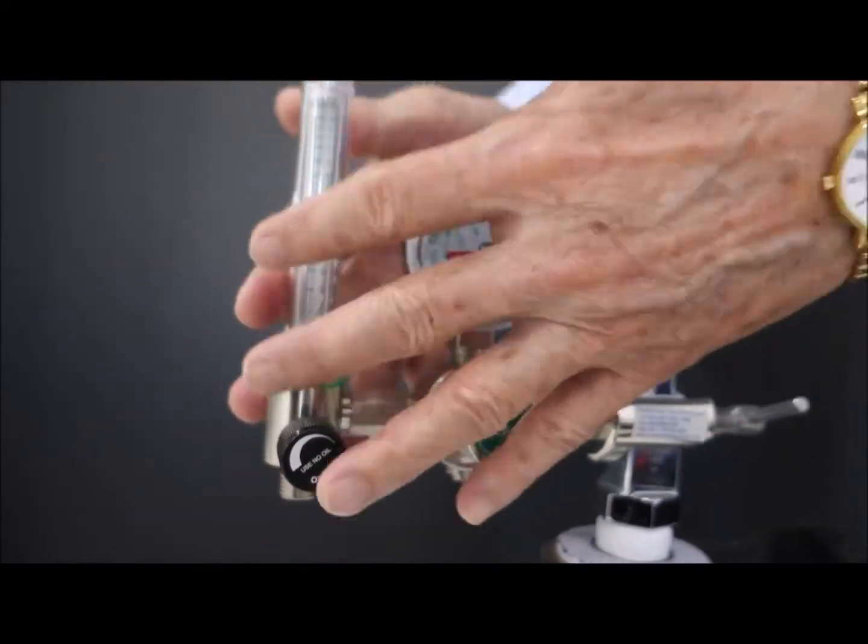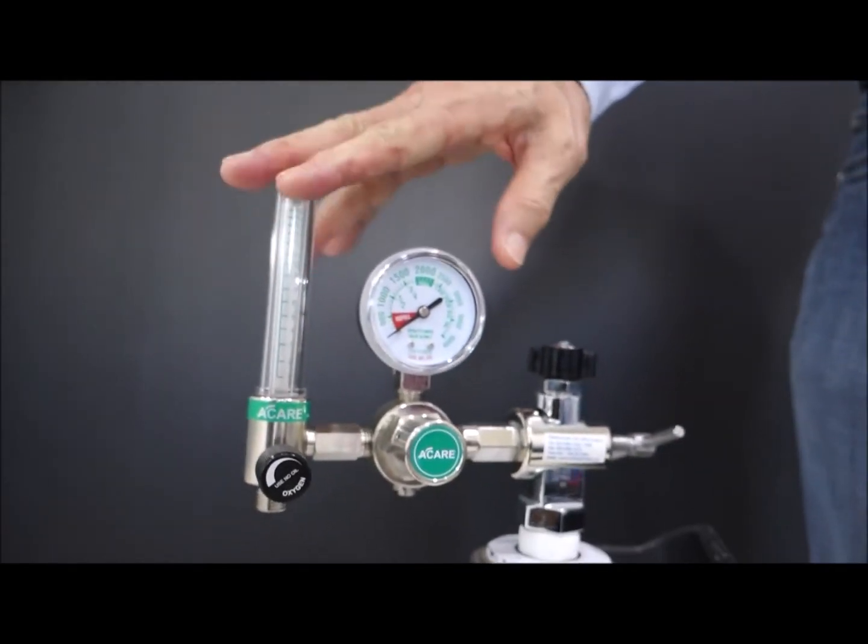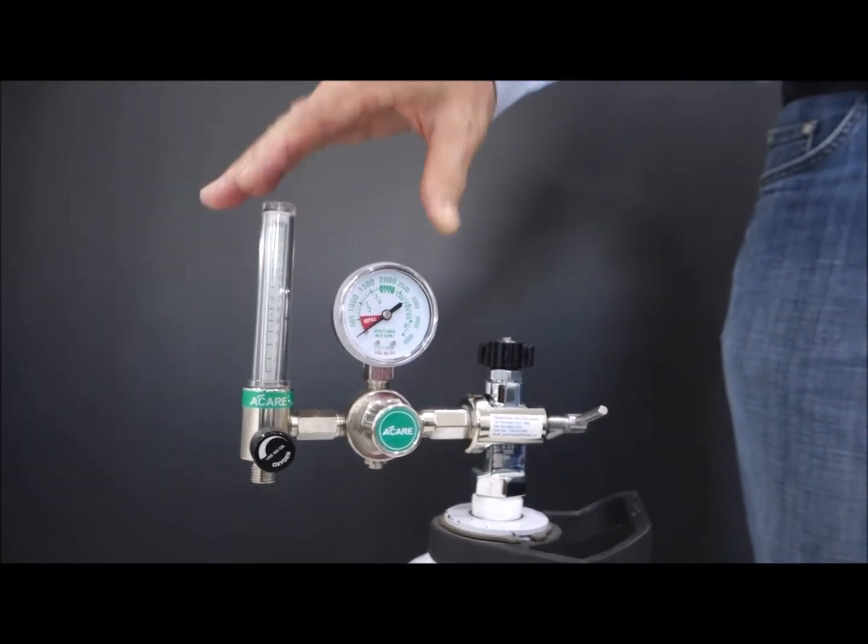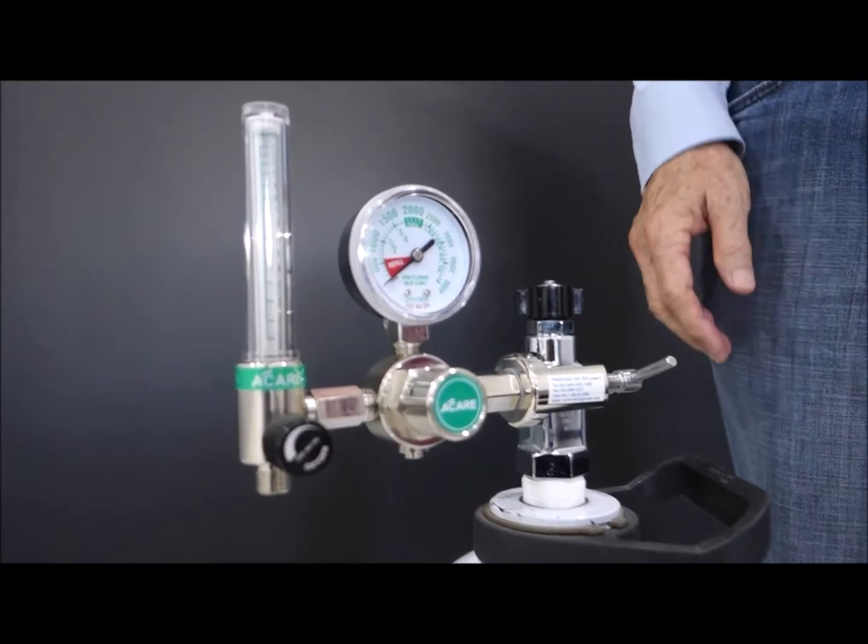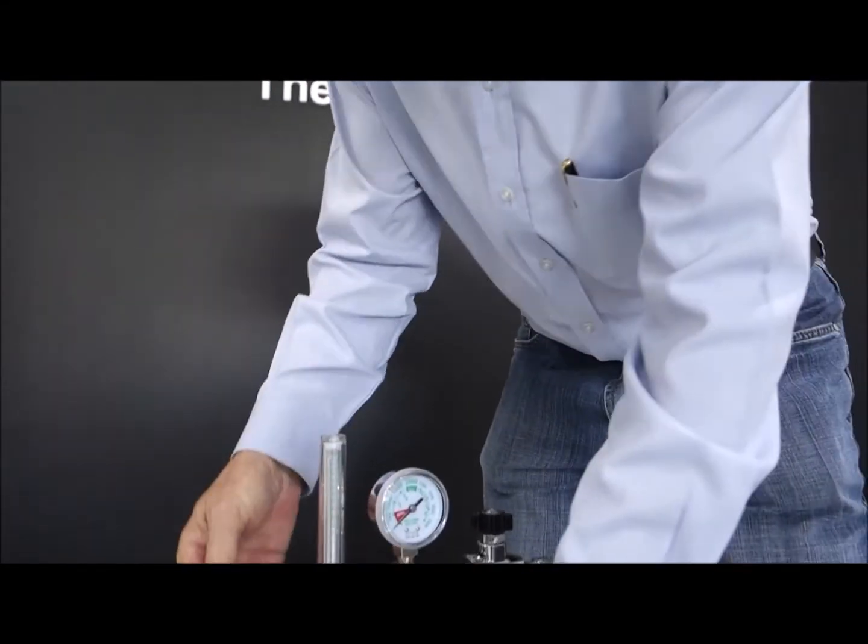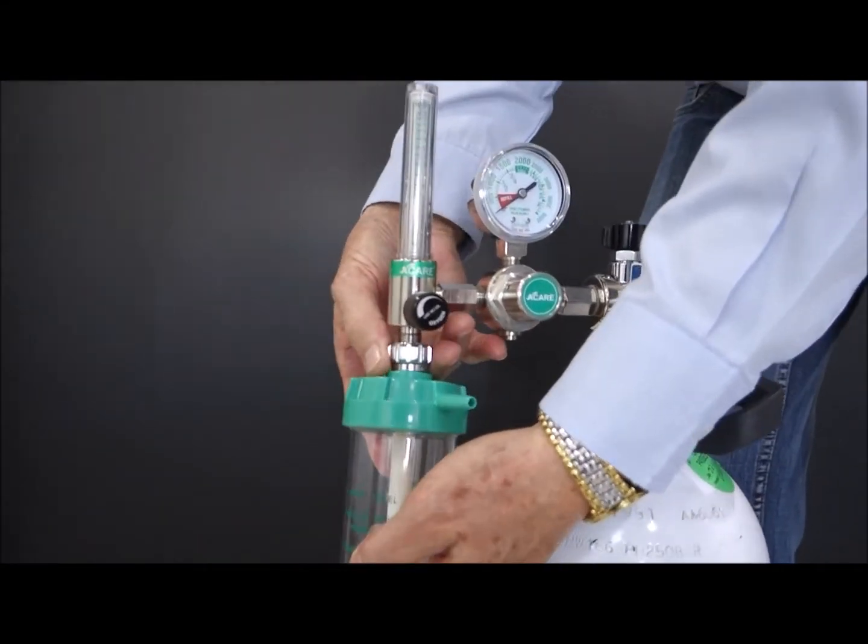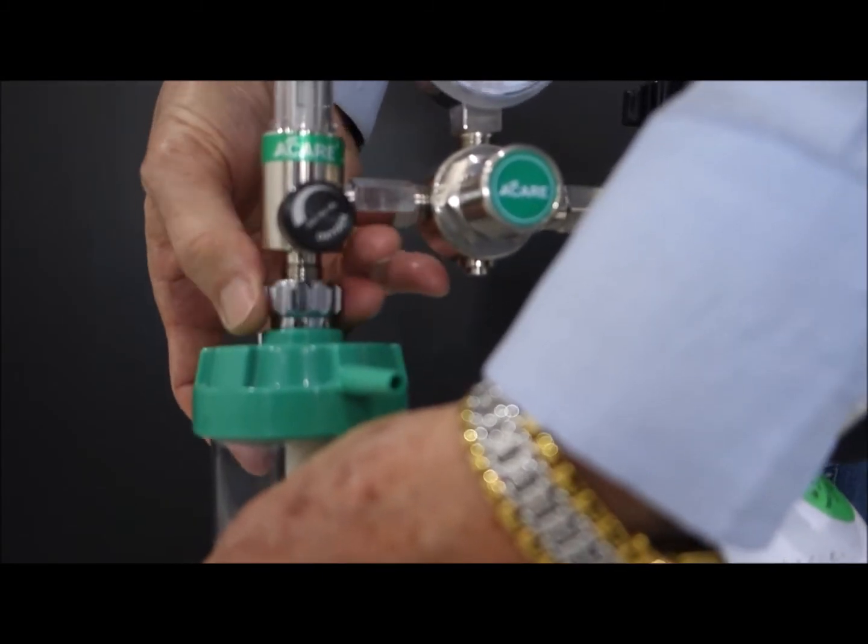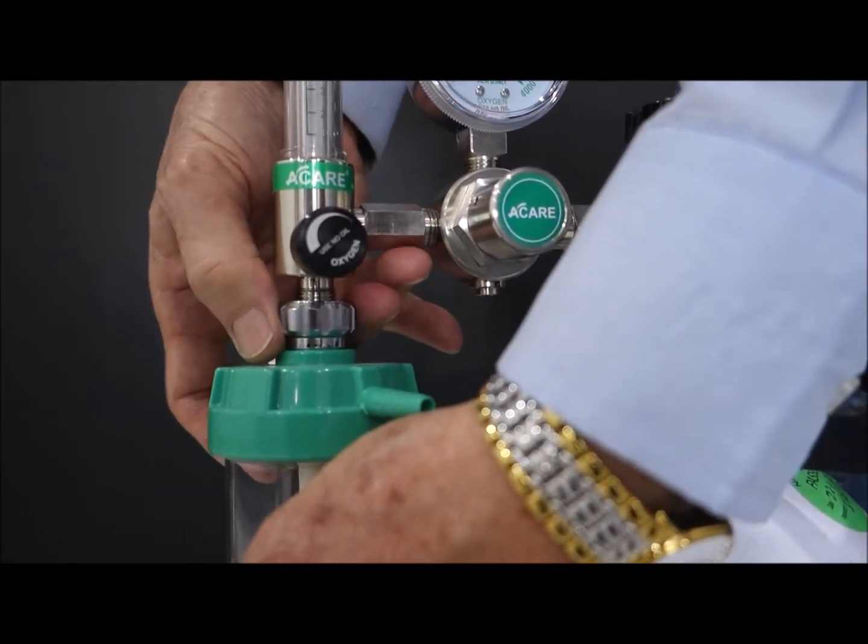So this is a very reliable regulator set, and it should last you for years if you use it properly. This is a humidifier. Connect the humidifier again, in this case.